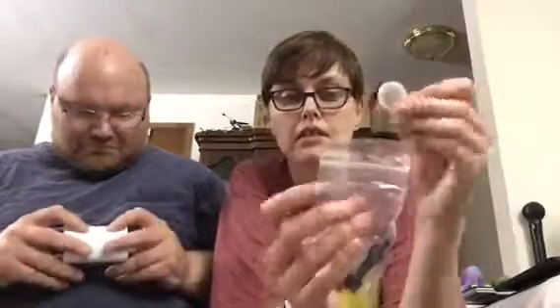This is a skin I can put over the sound processor if I want. I'm probably not going to use it because I want to get used to hearing with it without the skin. I'm going to squeeze the air out so it fits back in the pouch. In this bag is another abutment cover, so I've got three abutment covers total. I should take one and put it in a little zip-lock bag in my purse for when I go to the hairdresser.